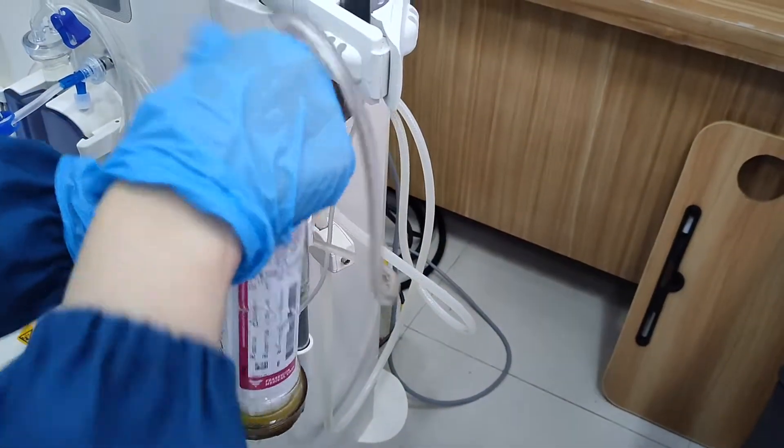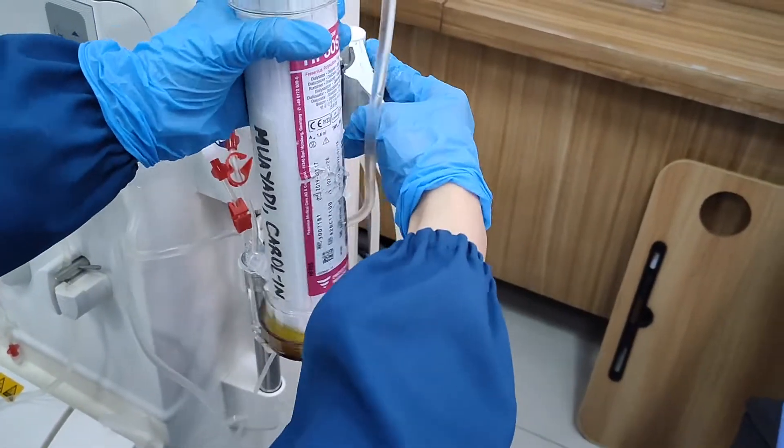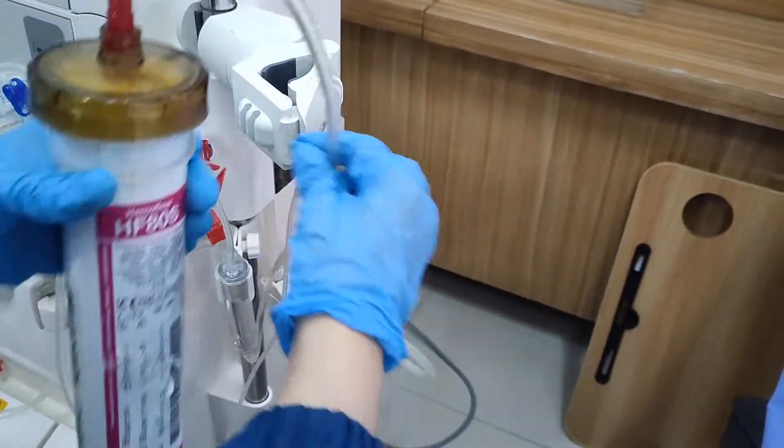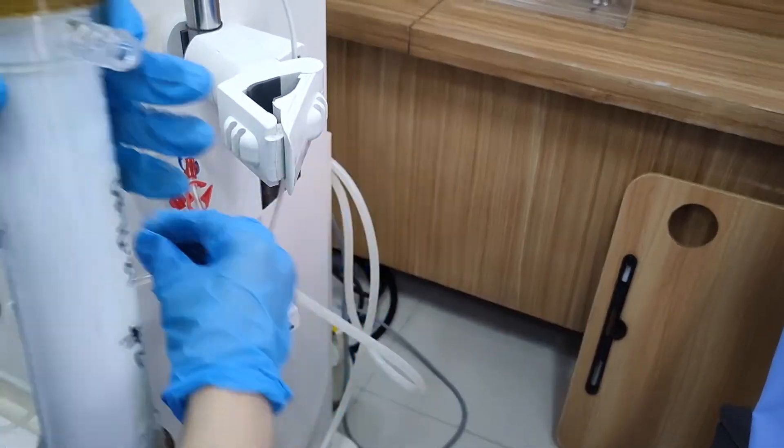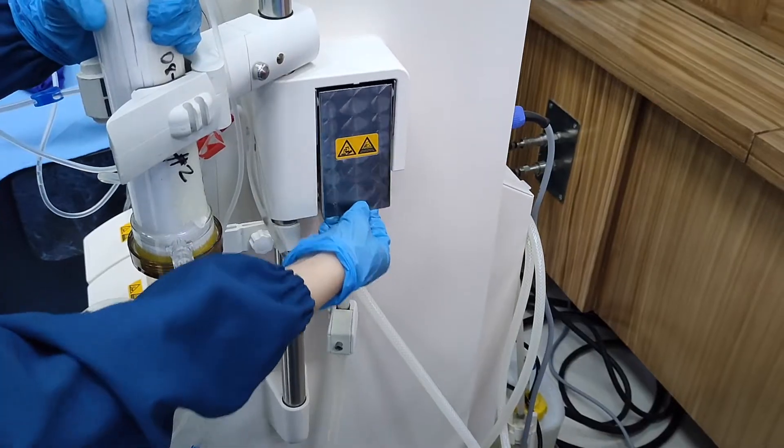Make sure that you have secured them both well. Then, place the dialyzer on the holder.